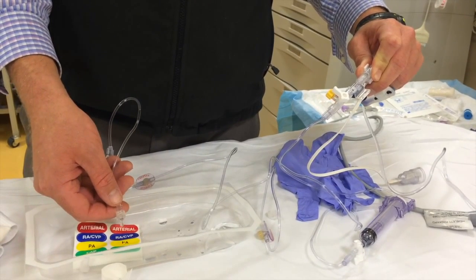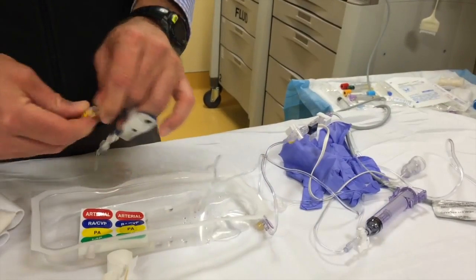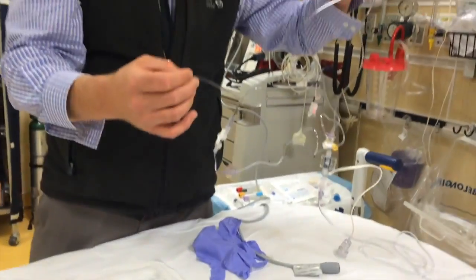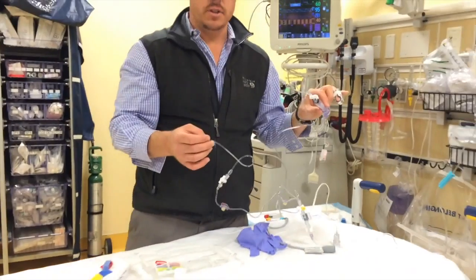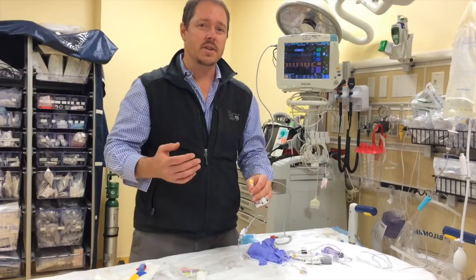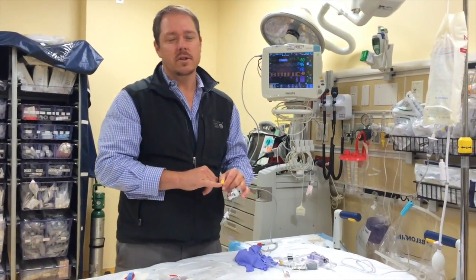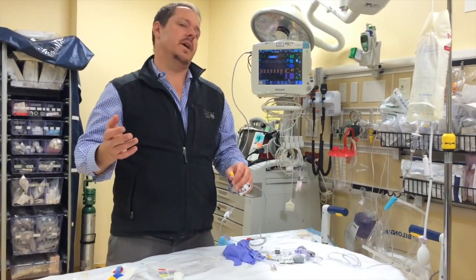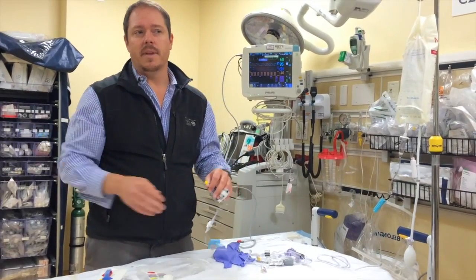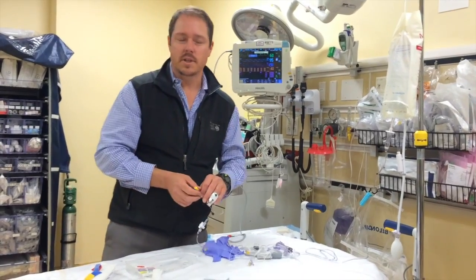Our line is primed. We put the terminal cap on, and this line can be set up and held until the physician has finished placing the central line. Once you're ready to apply it to the patient, you're going to connect this to the distal port, which is almost always brown. We used to say brown equals blood equals distal. If you don't want to use that mnemonic, just look at the ports themselves — they'll say distal, proximal, or medial.